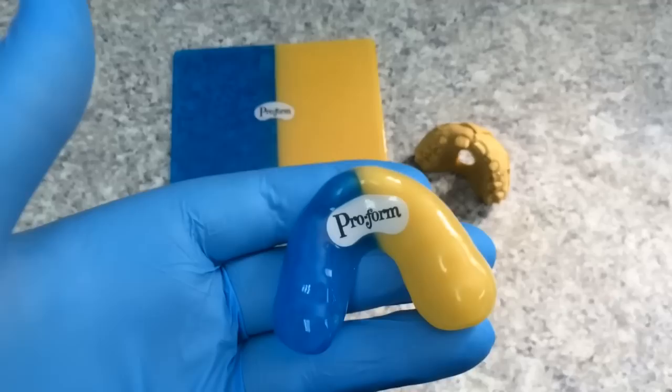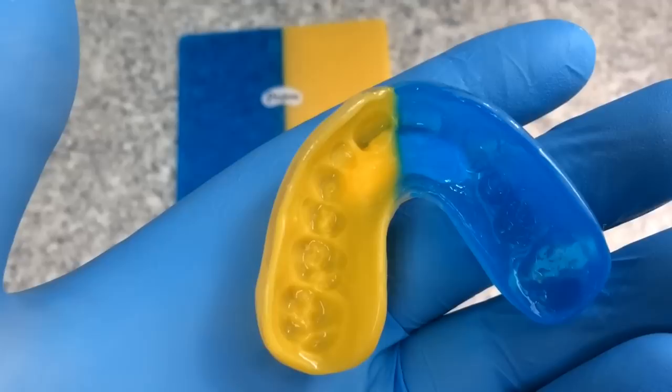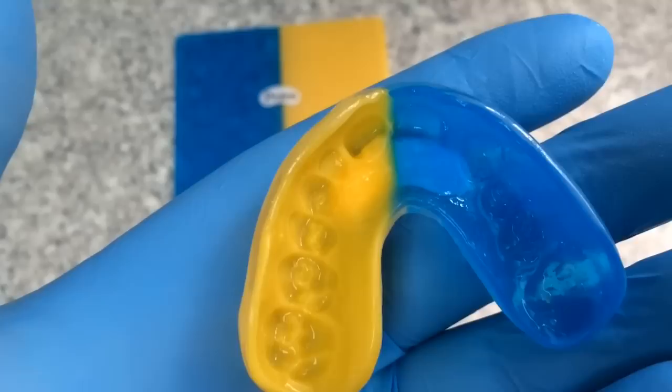So this here on the inside, just to show you this is the difference between a professionally made mouth guard and one of the boil and bite mouth guards that you might get at the drugstore. If you were to look at that you'll see how well everything is fitted around the teeth.